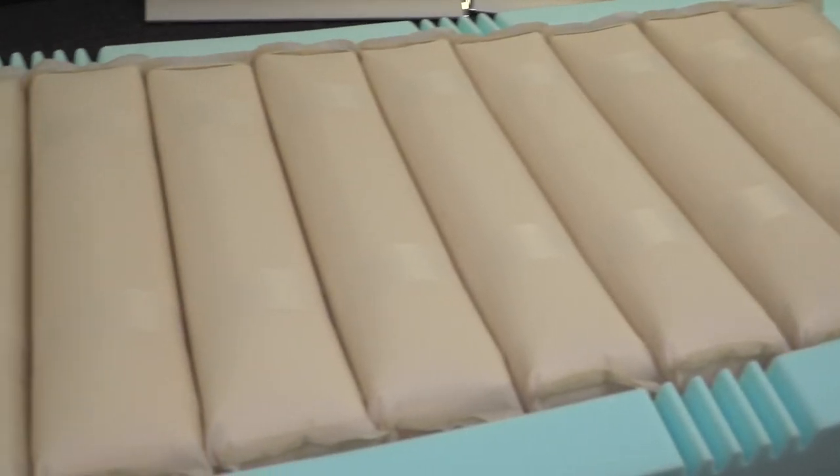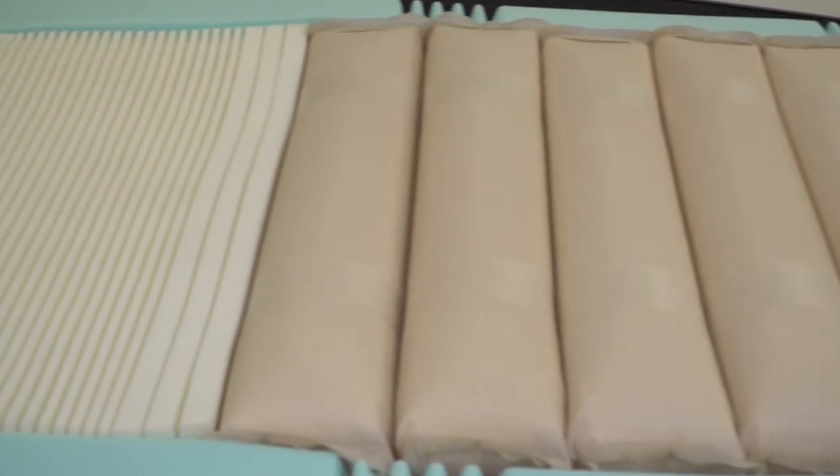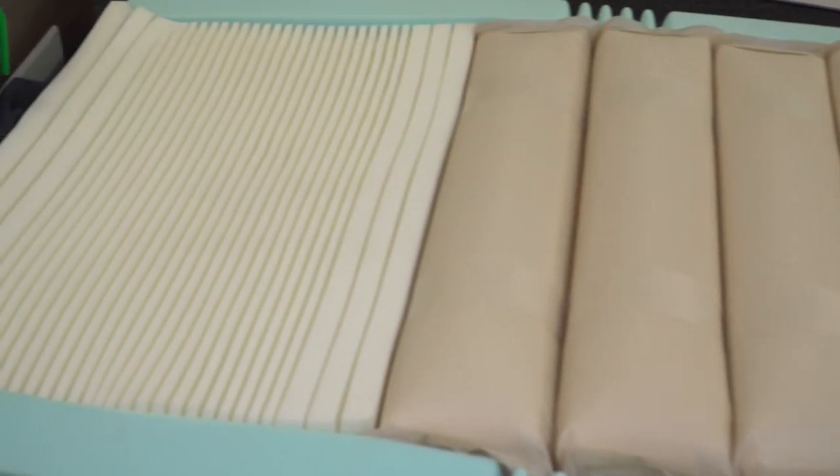The Herida Moray Combo has a foam insert on the underside of the cells as well as the heel area, which prevents any bottoming onto the bed frame. The foam consists of combustion modified ether, or CME, technology.